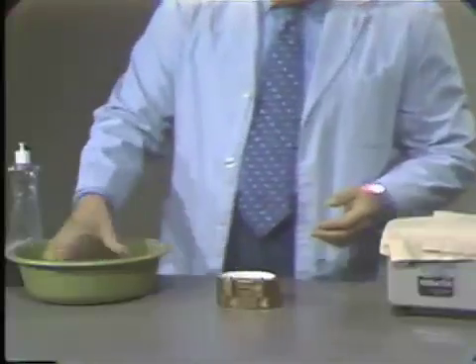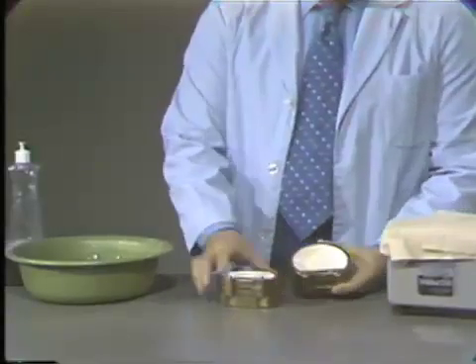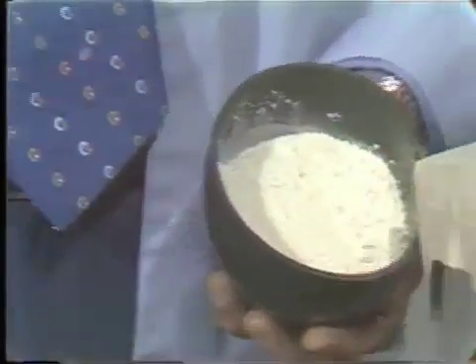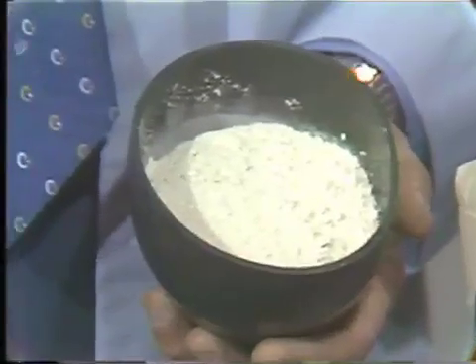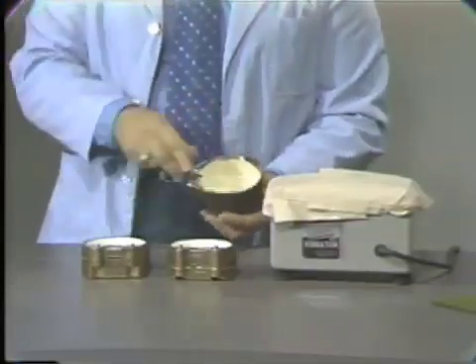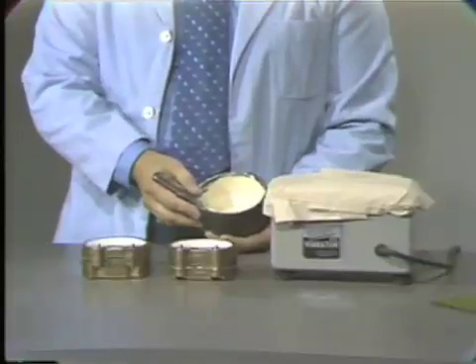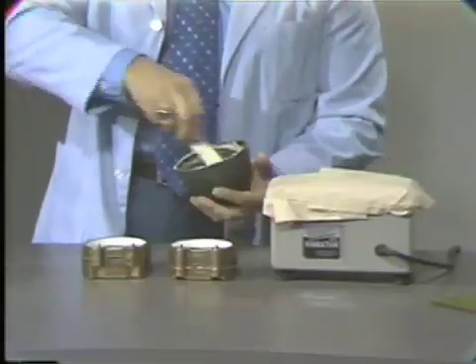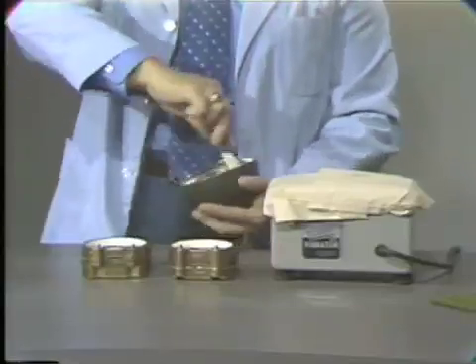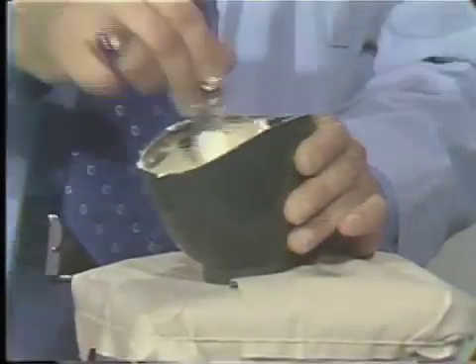If you did not use the red soap, there would be a tendency for these different layers to stick together. So we are now ready for the last pour, and in our last pour we will be using yellow stone. I have proceeded to mix the stone. For both the flasks, I've used a 200-gram mix — it usually requires about 100 grams for the last pour. I have deliberately not included the water-powder ratios in this demonstration, as I assume you would have experience with this by this point. I like to vibrate the stone to get rid of any excess bubbles that may be in the mix.